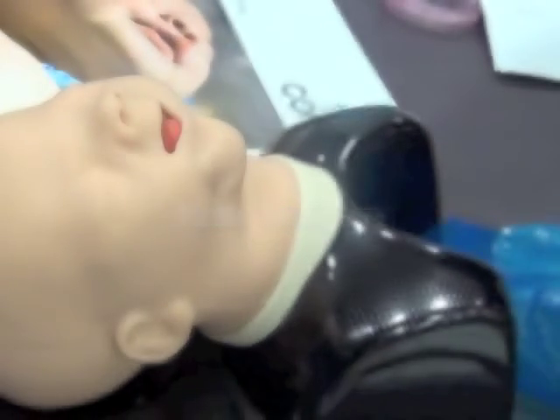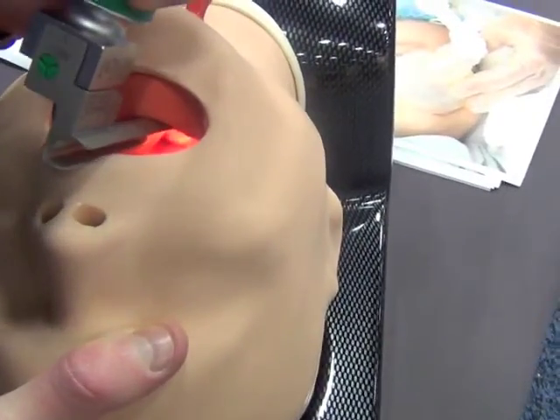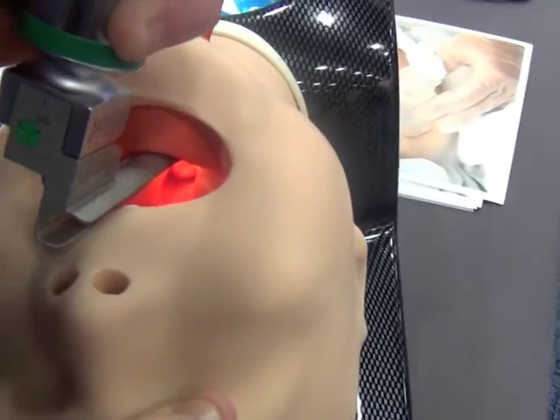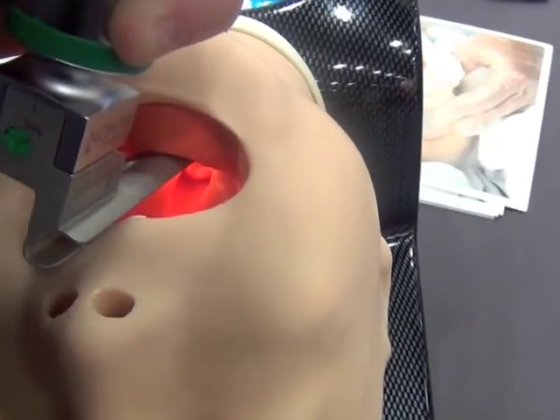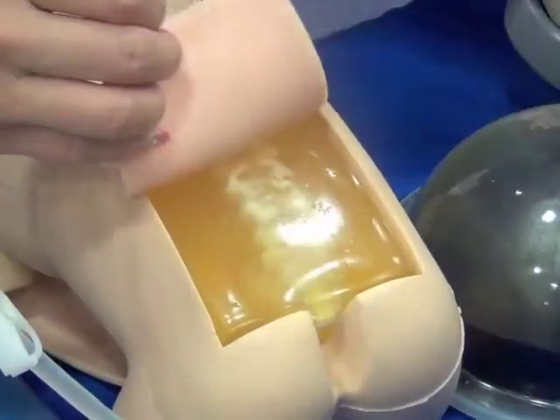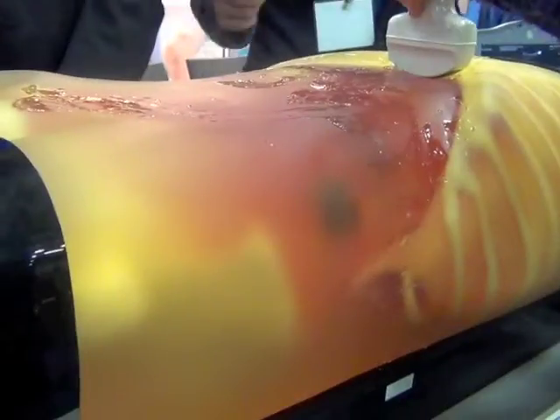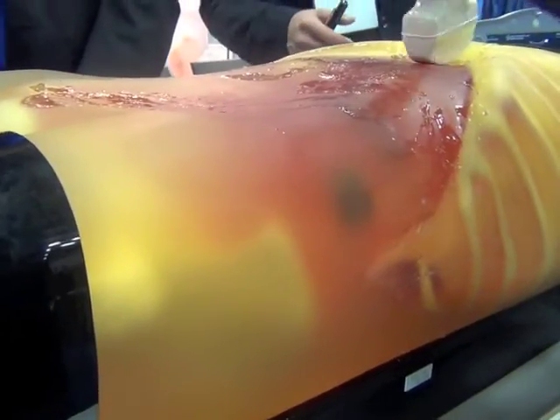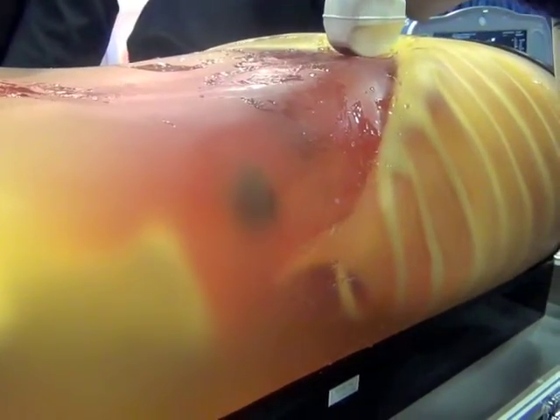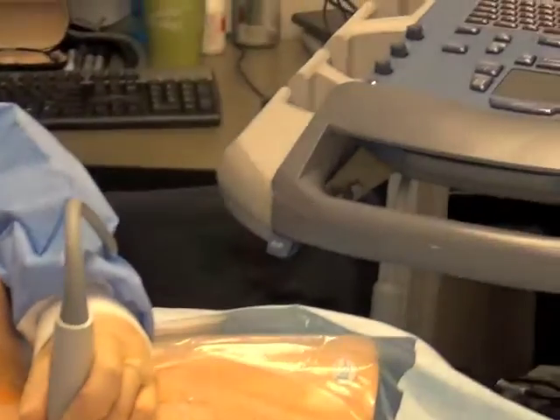Task trainers are mannequins or models designed to allow participants to practice clinical skills and tasks such as intubation, line placement, and ultrasound techniques. Curriculum that use these types of training devices focus on skills training at varying levels of skill goals rather than on a situation.